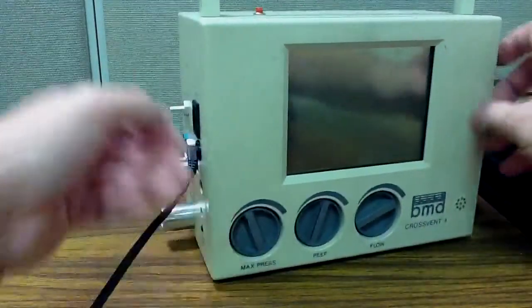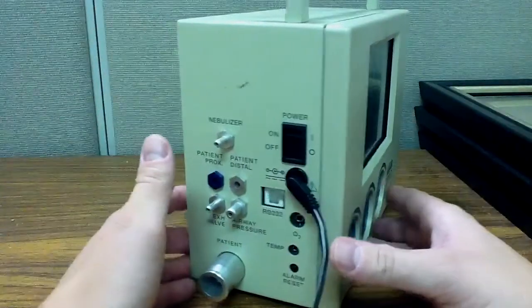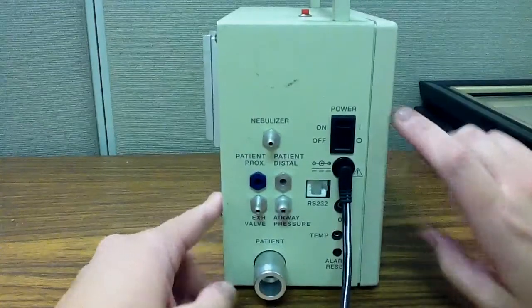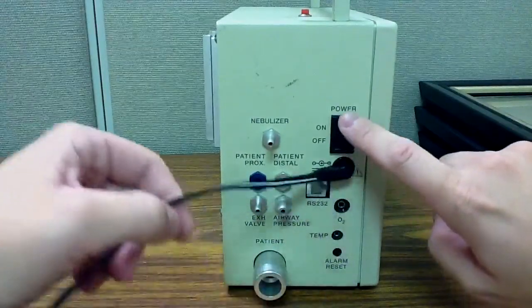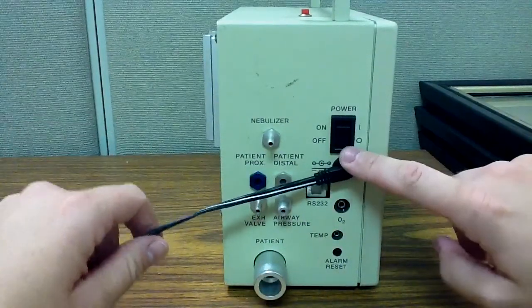I'm going to take a look at the side of the ventilator here. So we have our power switch. This turns it on. Up is on, down is off.